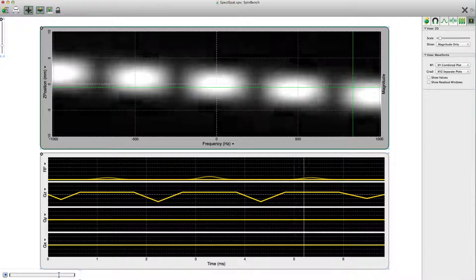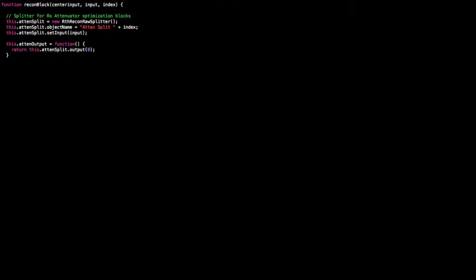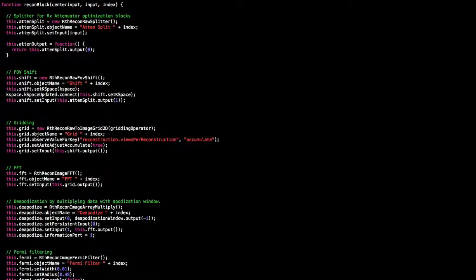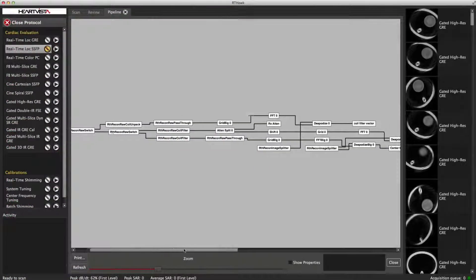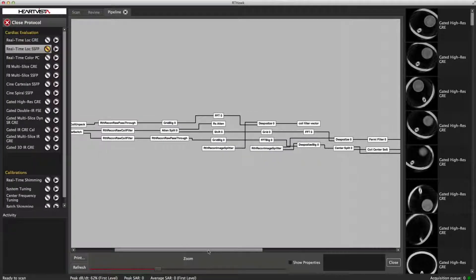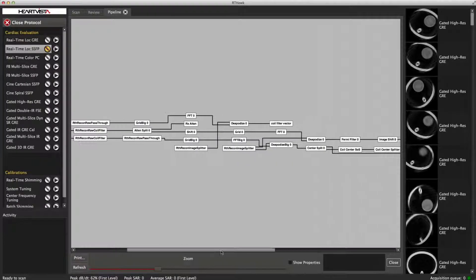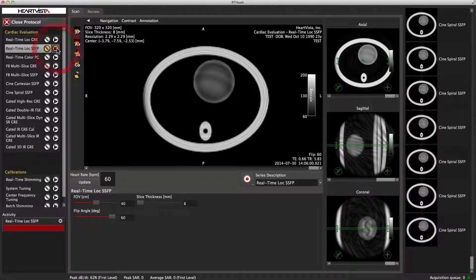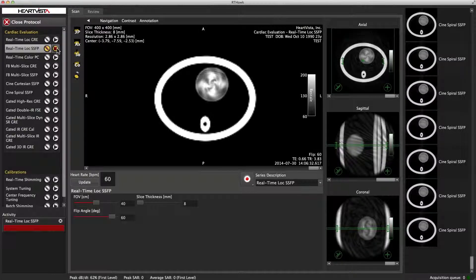The development process continues with the reconstruction engine. Image reconstruction is data-driven and is specified using a declarative JavaScript. Reconstruction pipelines can be graphically displayed in RT-Hawk for debugging. The user interface of RT-Hawk is intuitive and can be customized as needed. An offline simulator allows the user to test and debug reconstructions.